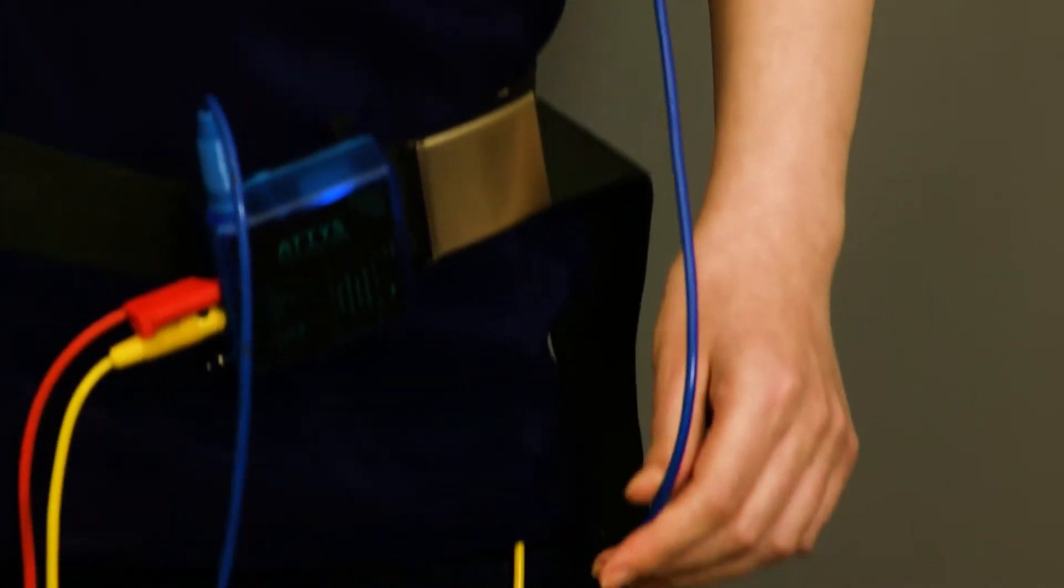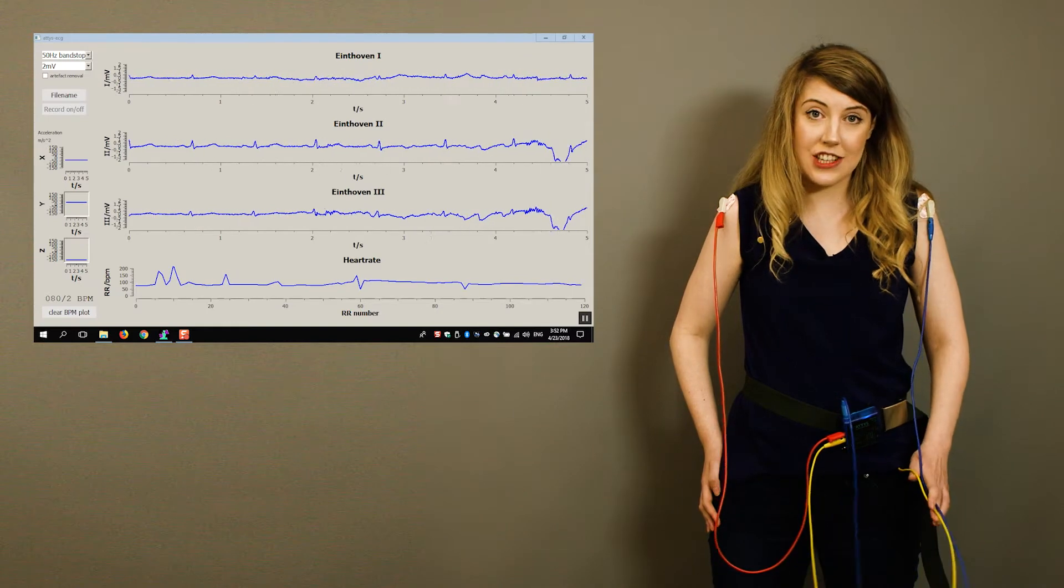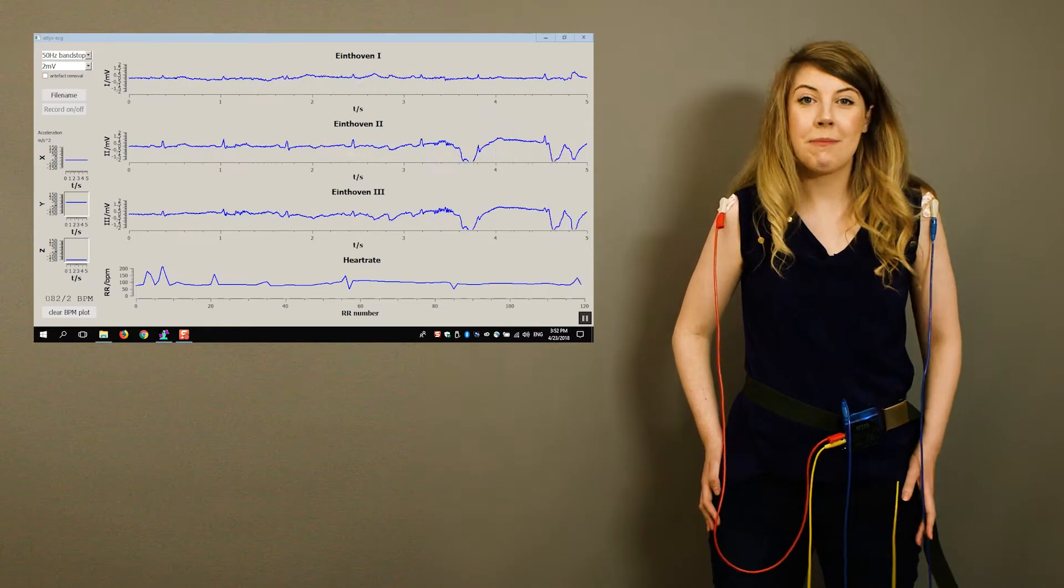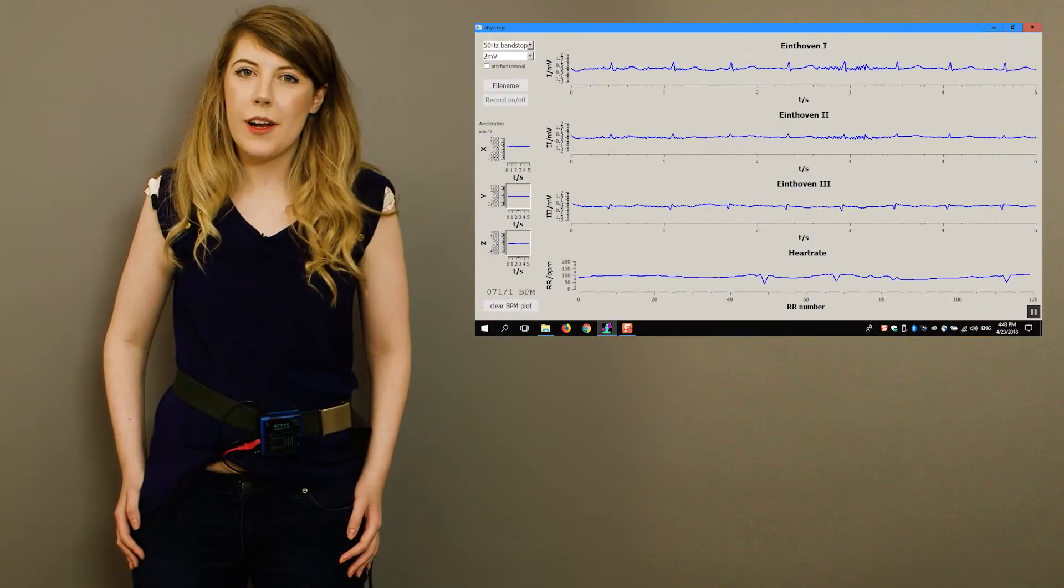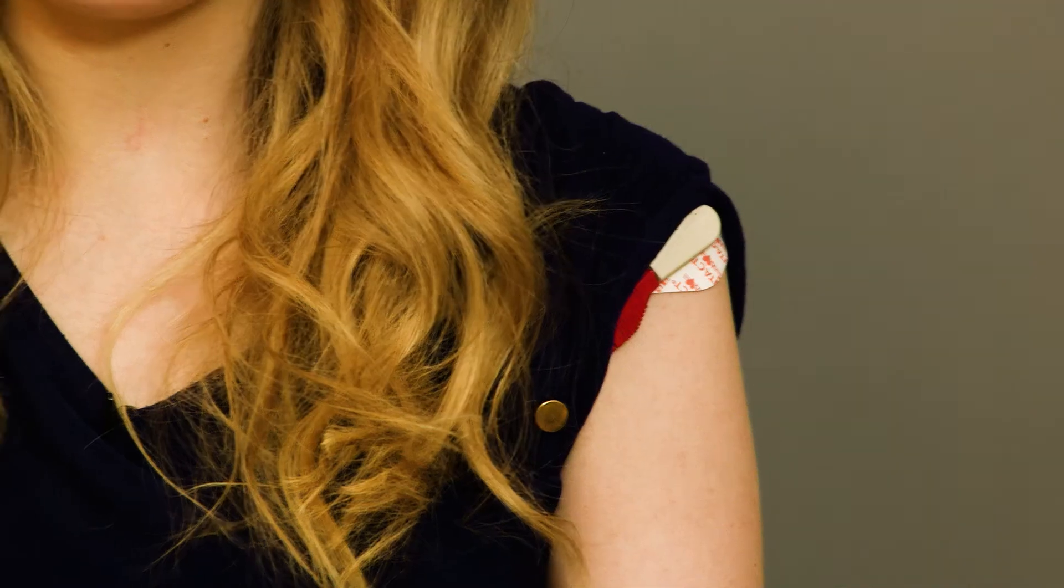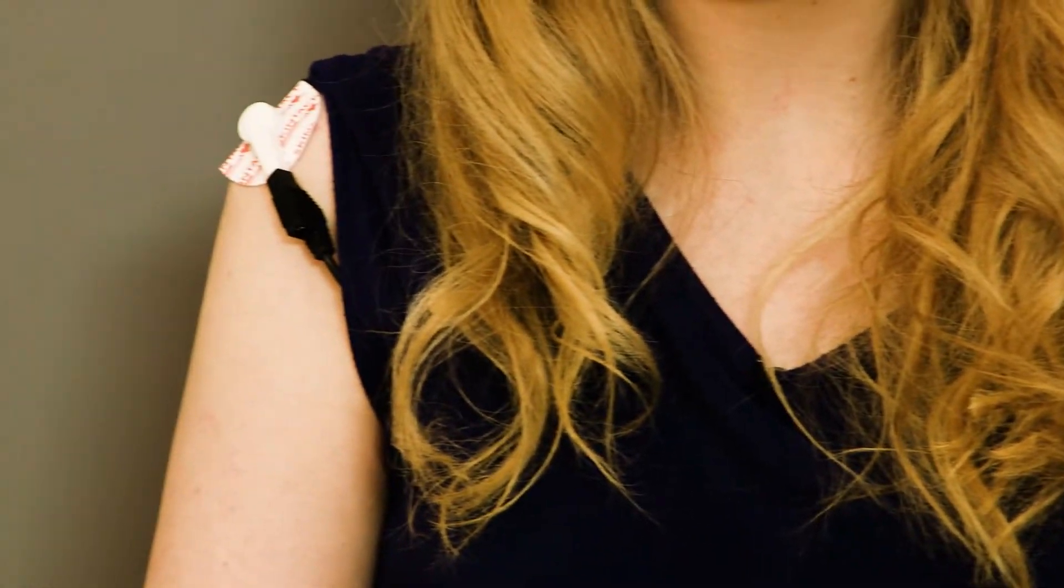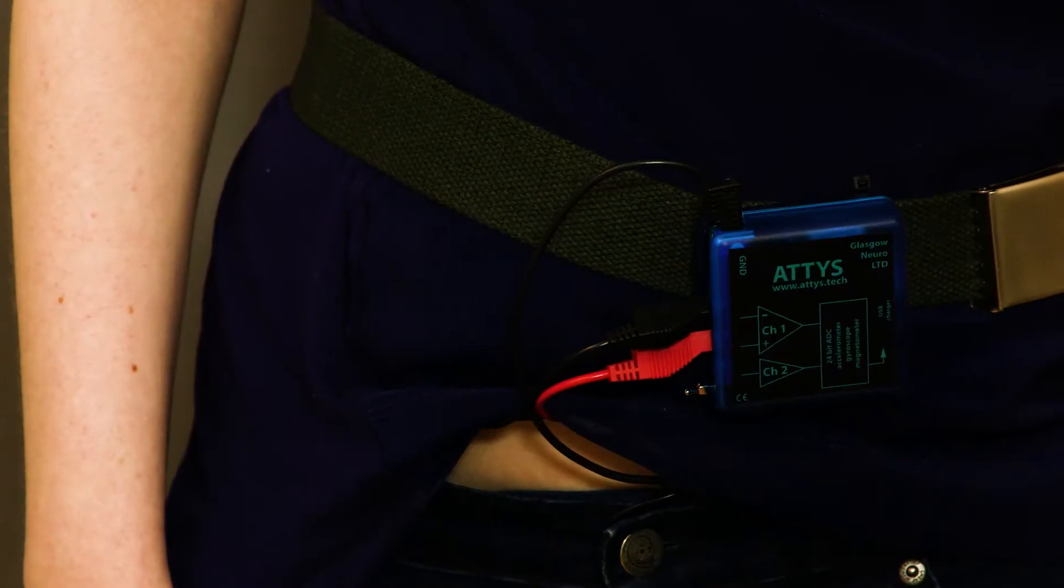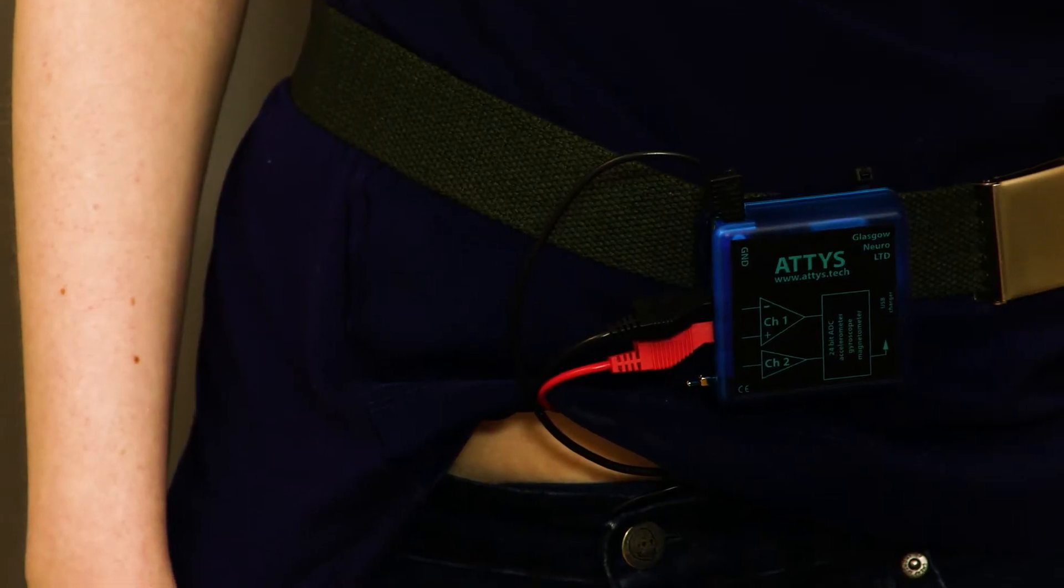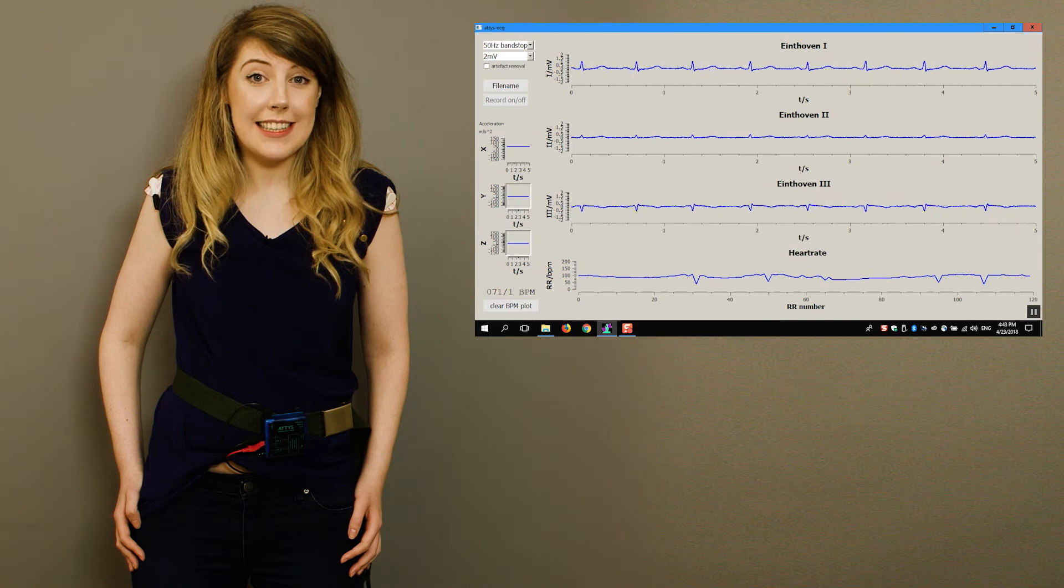We still have long cables and these cause baseline shifts. I've run the cables under my t-shirt so that they no longer wildly dangle about. In extreme cases, you could even tape them onto the skin.